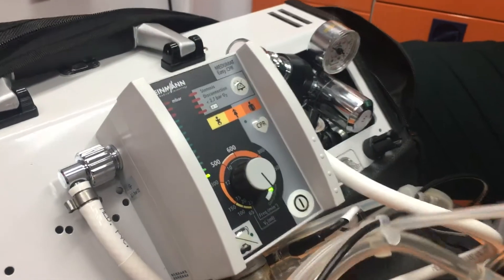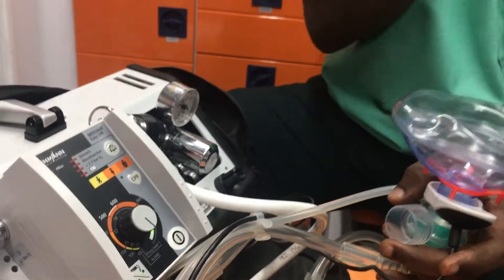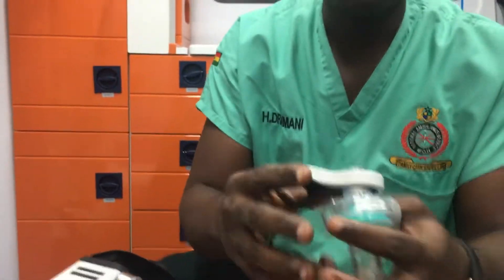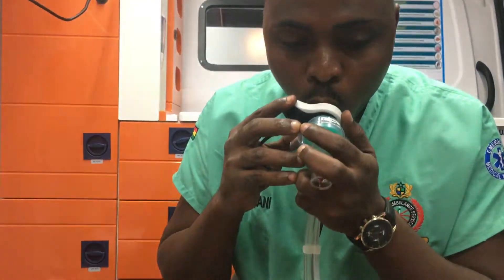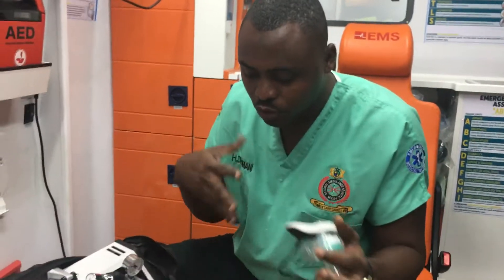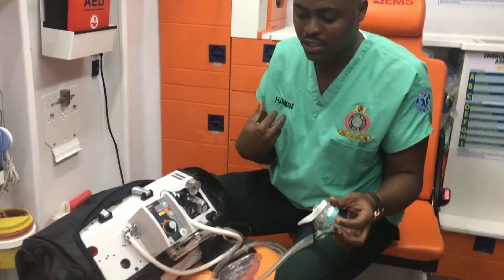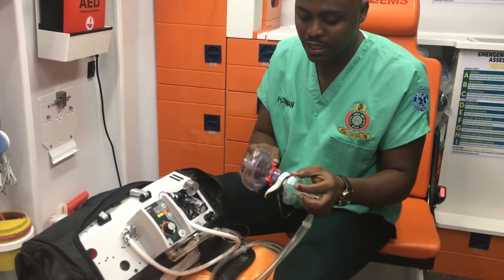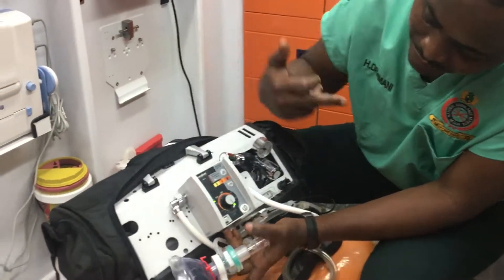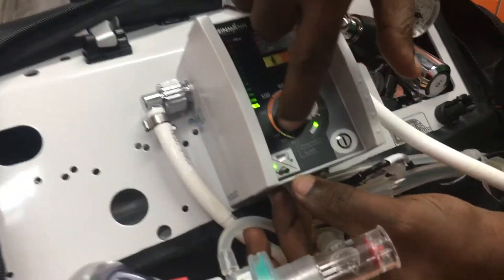For demand flow, you quickly shift it to that side. On demand flow, as and when the patient demands oxygen, the device will detect it and provide the oxygen accordingly.